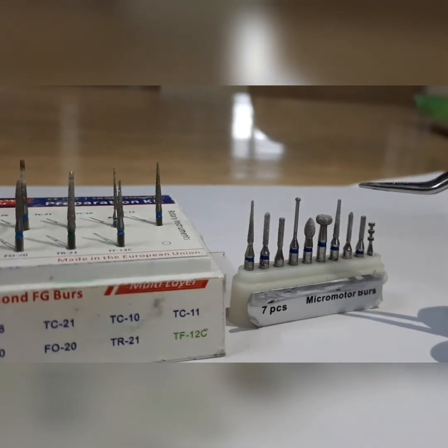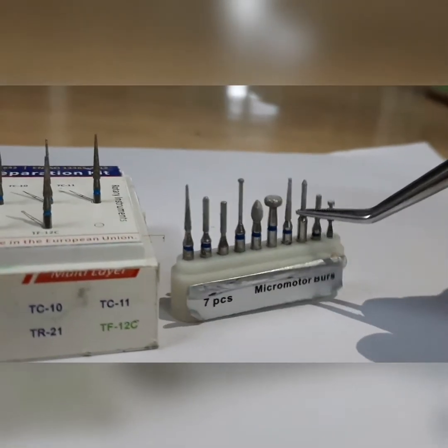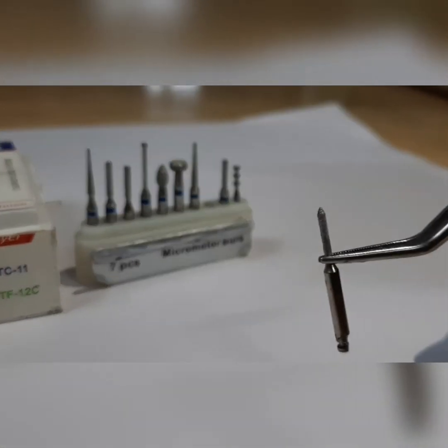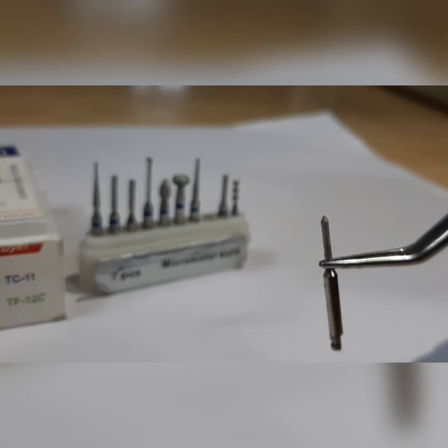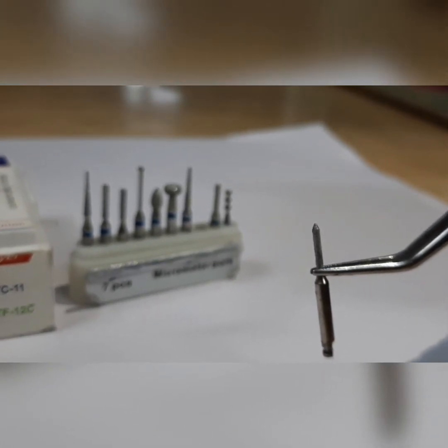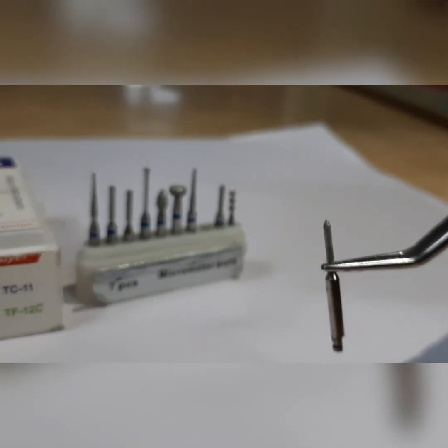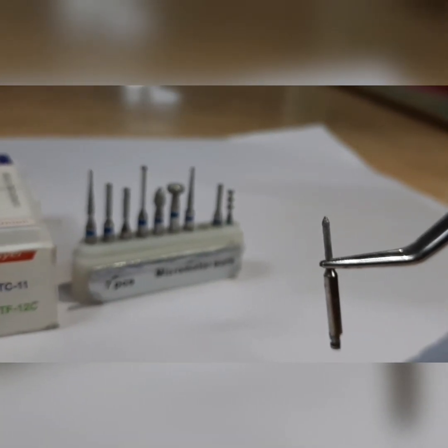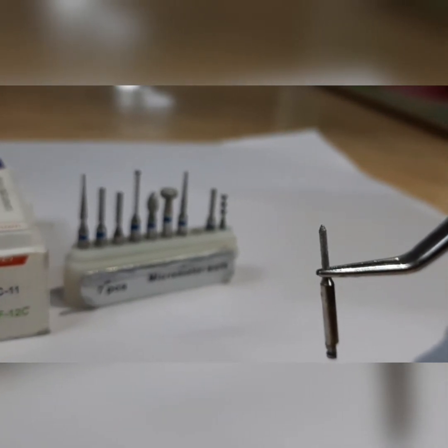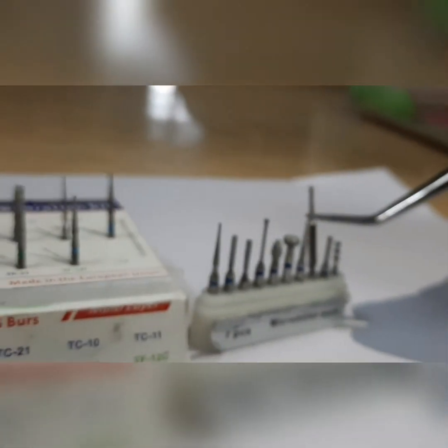This is a chamfer burr. If you see it, it is making an angulation. The finish line we get from this is called a chamfer finish line, so whenever we have to give a chamfer finish line we use this chamfer burr.